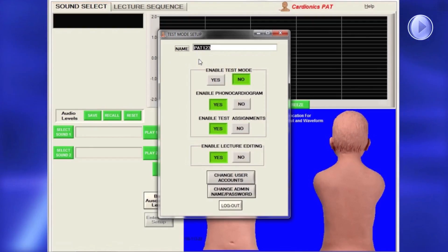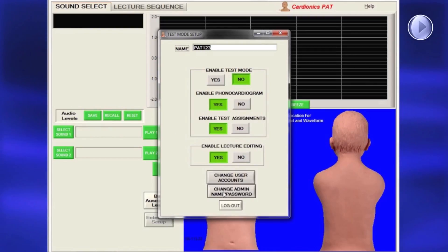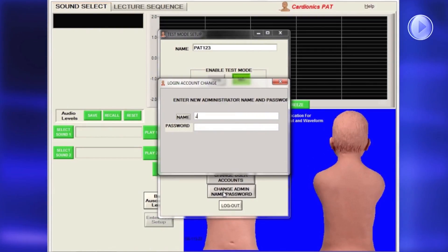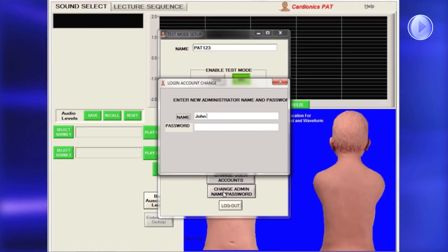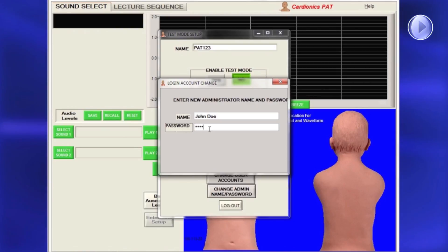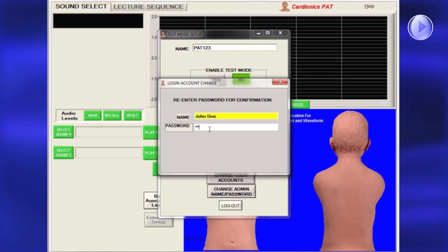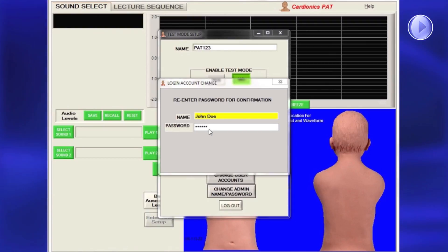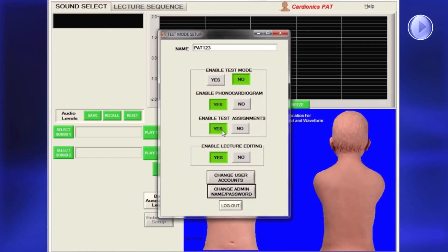Use capital letters as both names and passwords are case sensitive. You should change the name and administrative passwords from the factory default. Click Change Admin Name Password to bring up a dialog, fill in the name and select a new password. You will be asked to enter the password twice, and a message will confirm it has been successfully entered. Press Enter and a dialog will appear with the new name. You must log out to complete the password setup.